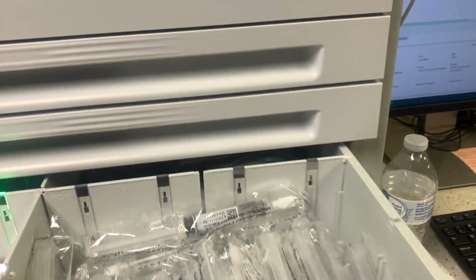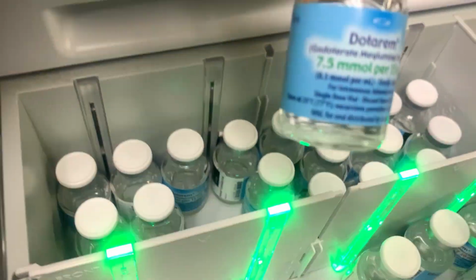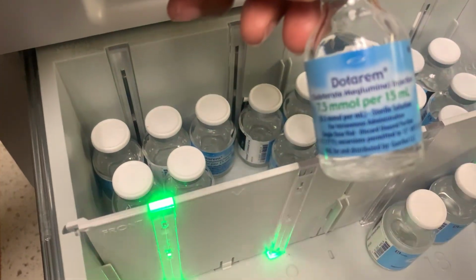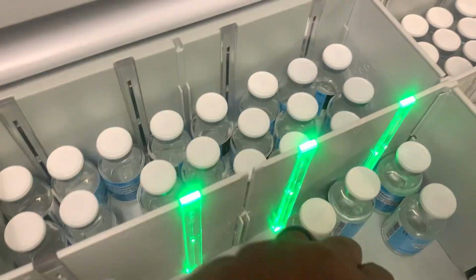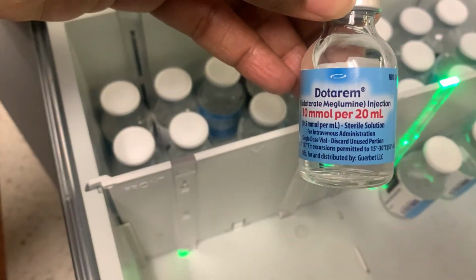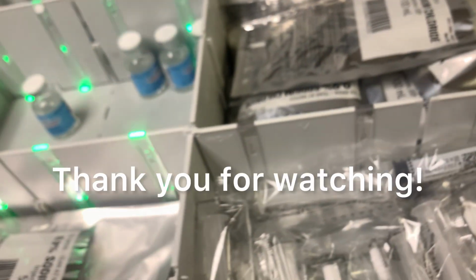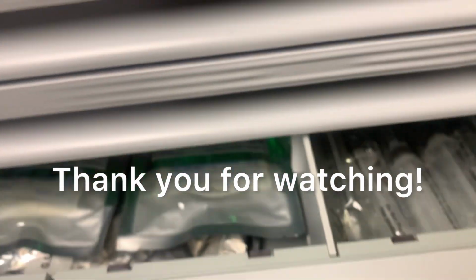And then we have more back here. We have a 15 milliliter bottle, and then a 20 milliliter bottle, and then we have a 10 milliliter bottle. All right, that's it.